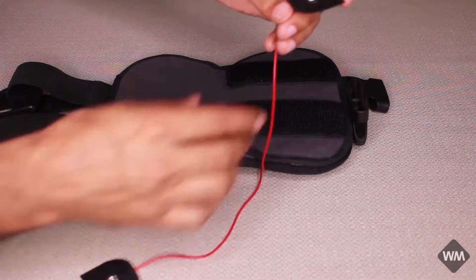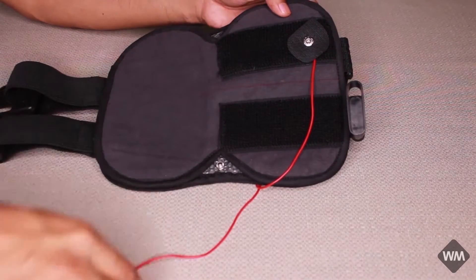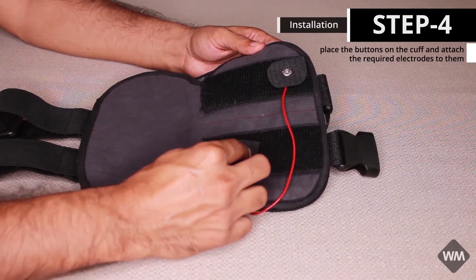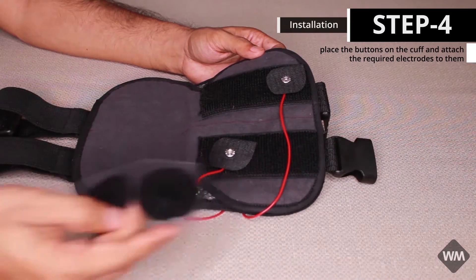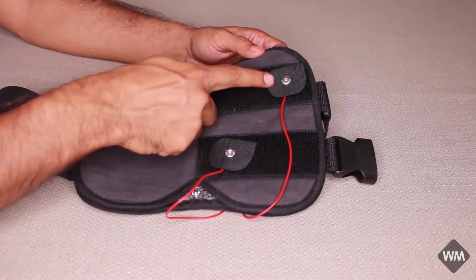This part goes on to the inner side of the cuff — one on this strip and the second one would go on the second black strip. These are the electrodes that are put on these buttons.